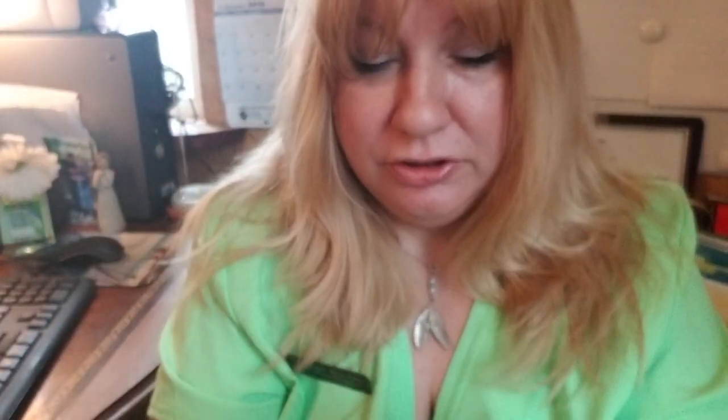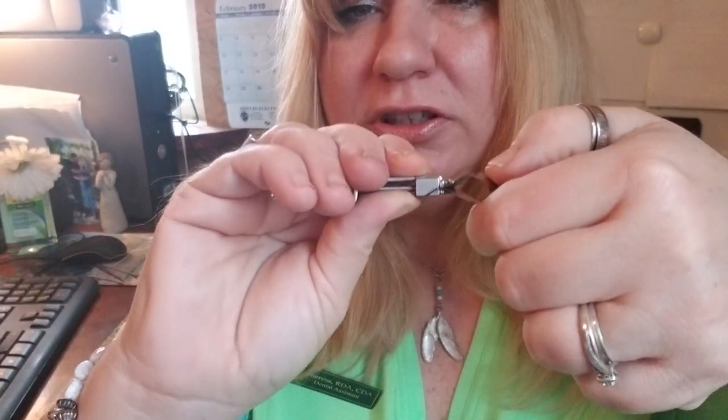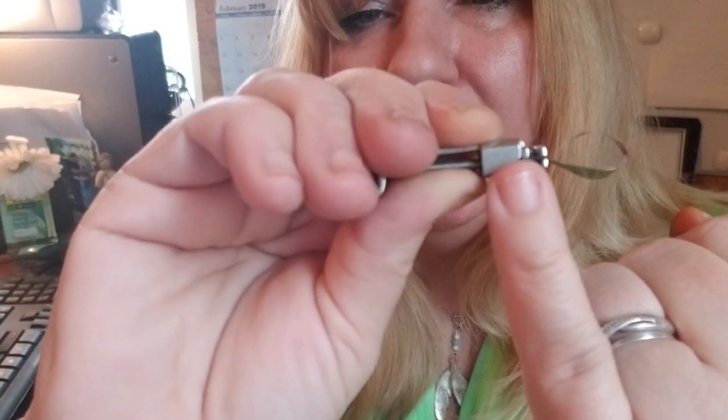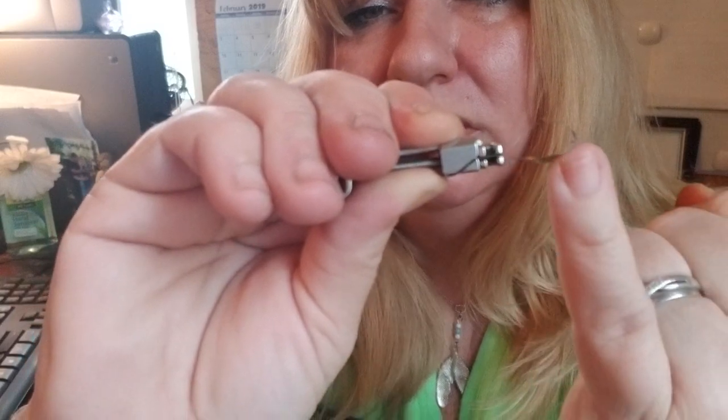You're gonna take your Toffelmire — this is your matrix band — it comes in different sizes. There's a slot right there, and you're going to slide this band into the slot like that. You're going to make sure you engage it right into both those slots.